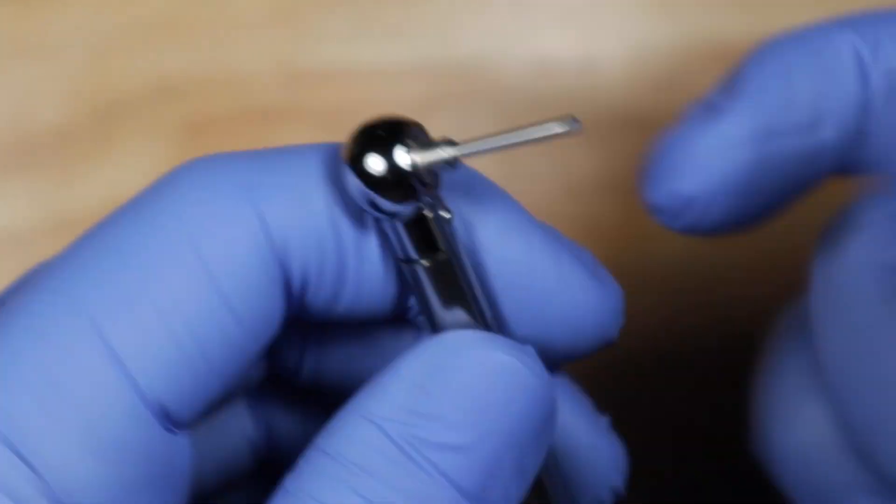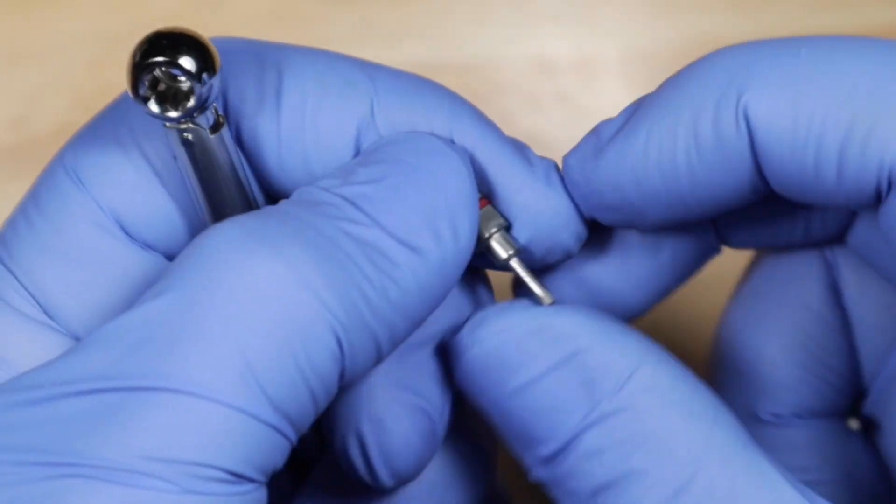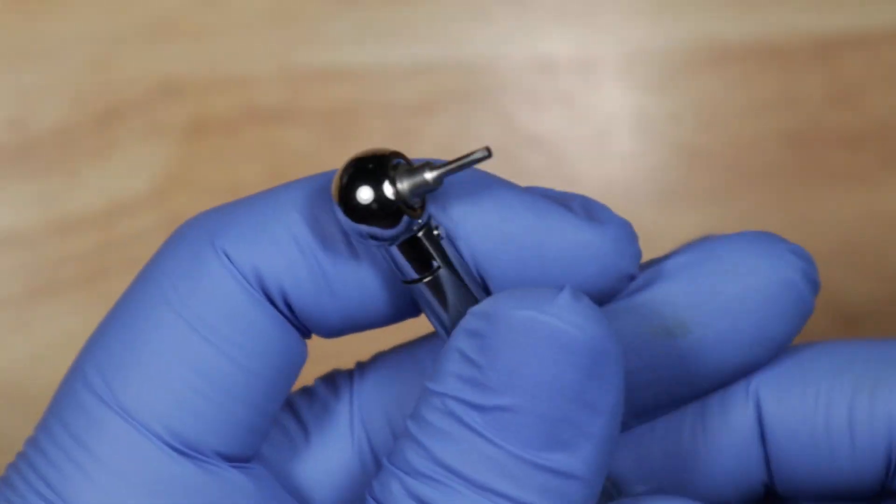You can use this with the long one, right? This is the long one. You can also use it with the short one. You can use it with anything that has a square bit on it.